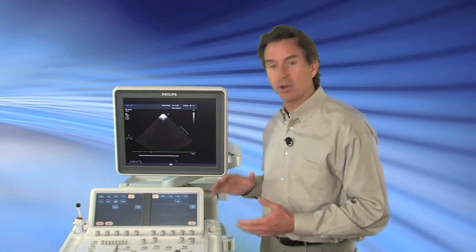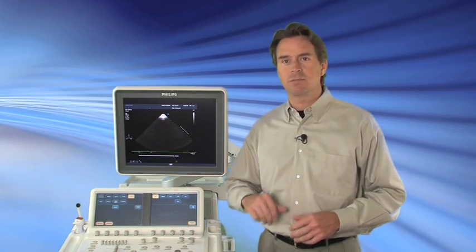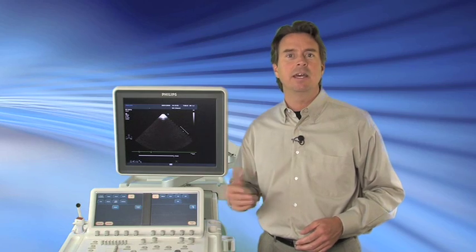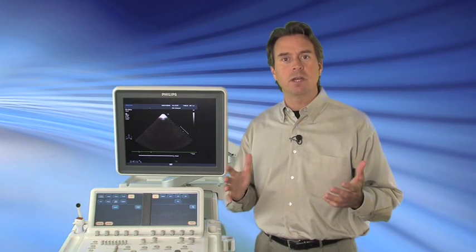We'll go through the basics of ergonomics, plugging in transducers, entering patient data, scanning, and actually saving the exam. And at the end, you'll be able to fundamentally go ahead and start scanning on the system.